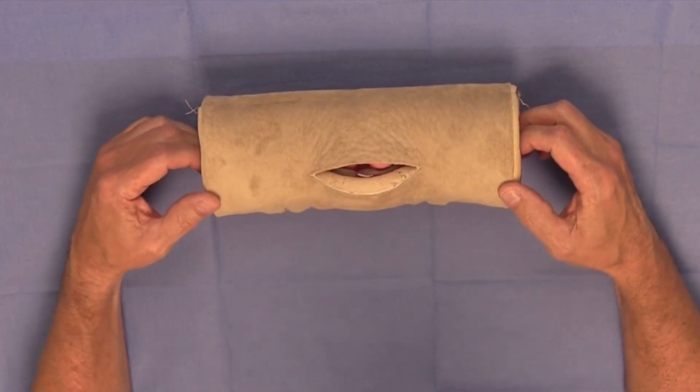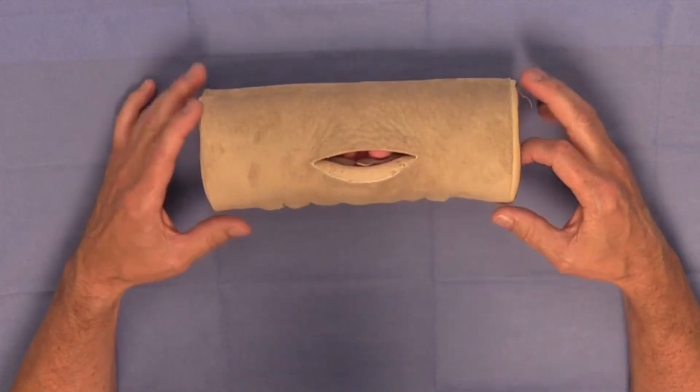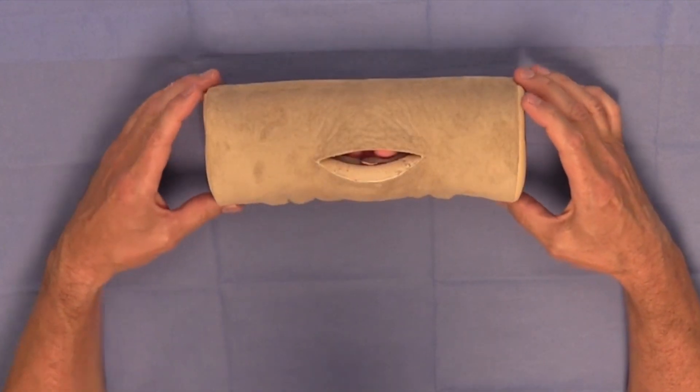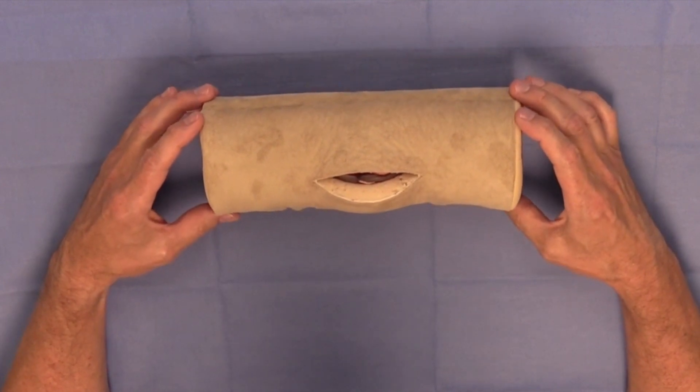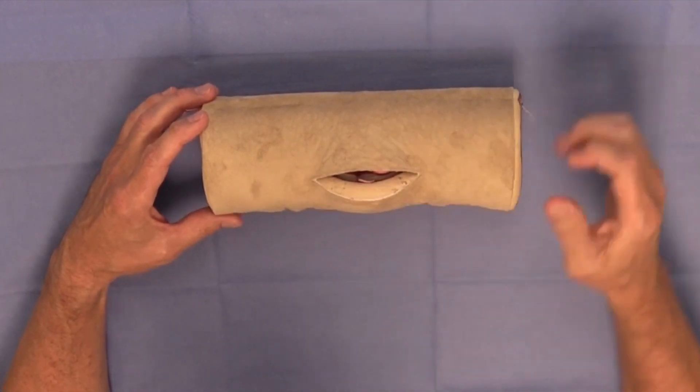I would like to discuss just a few additional tips about working with your DAISY. Now you can see that I have the DAISY oriented with the incision transverse.